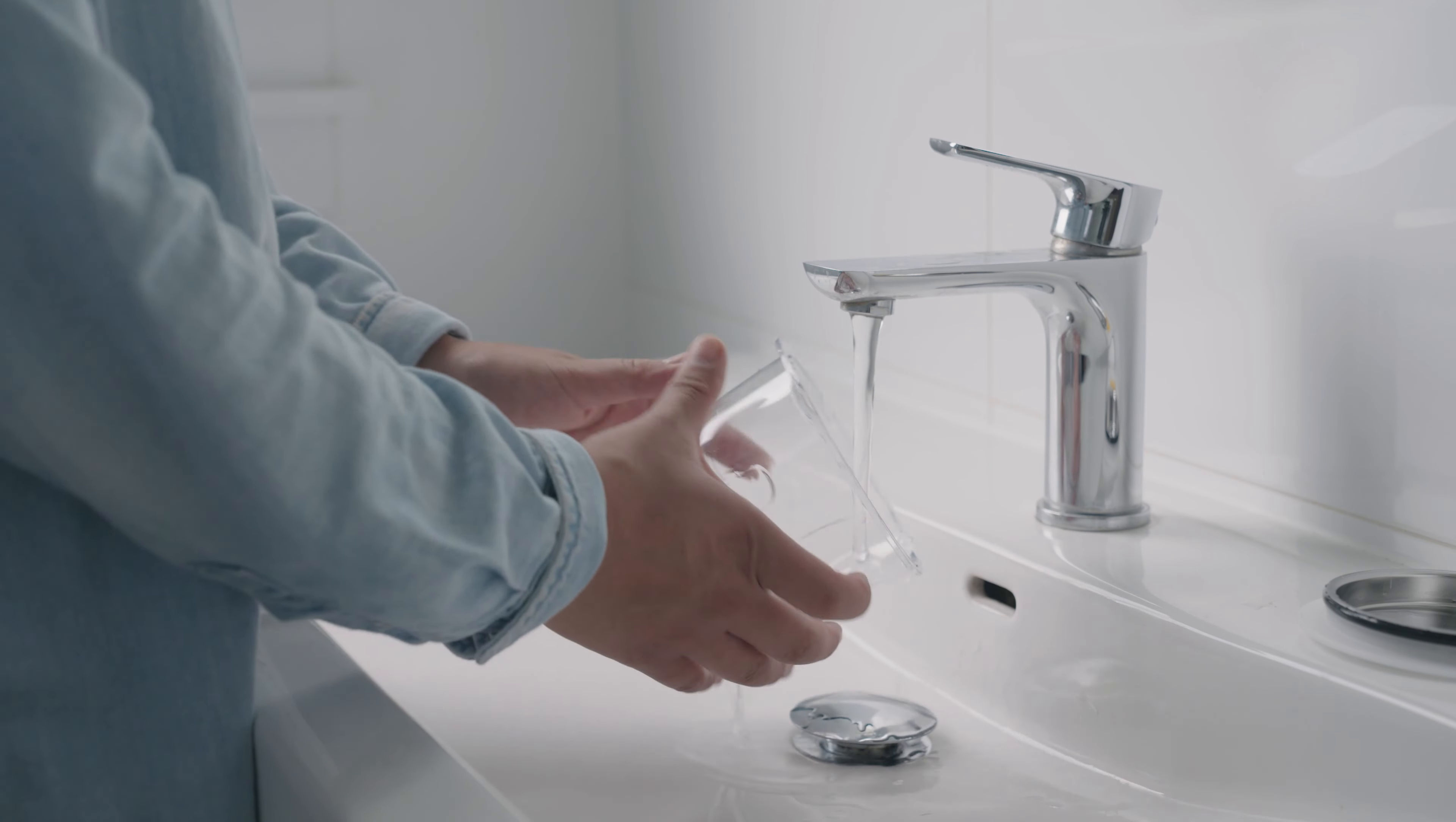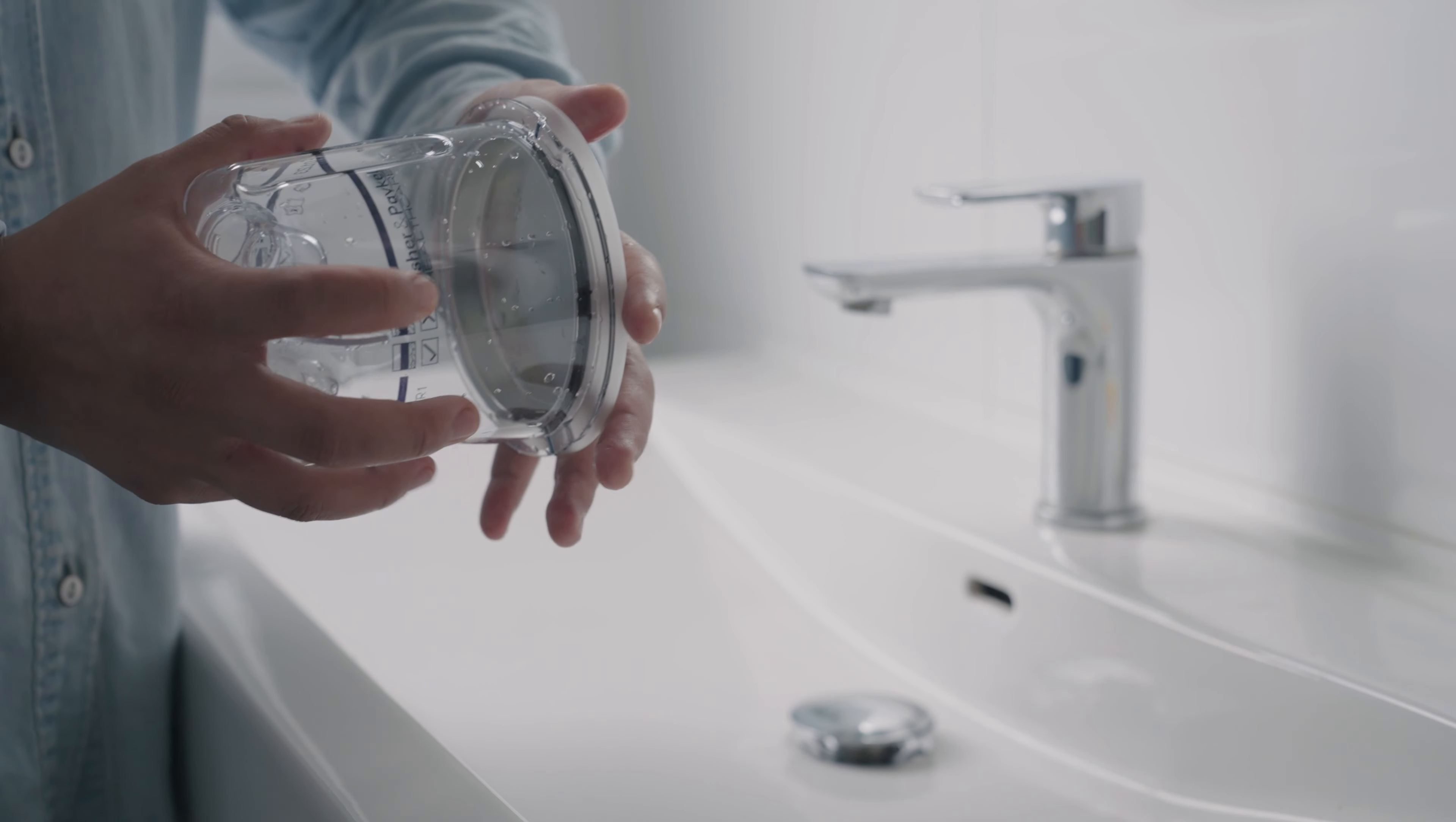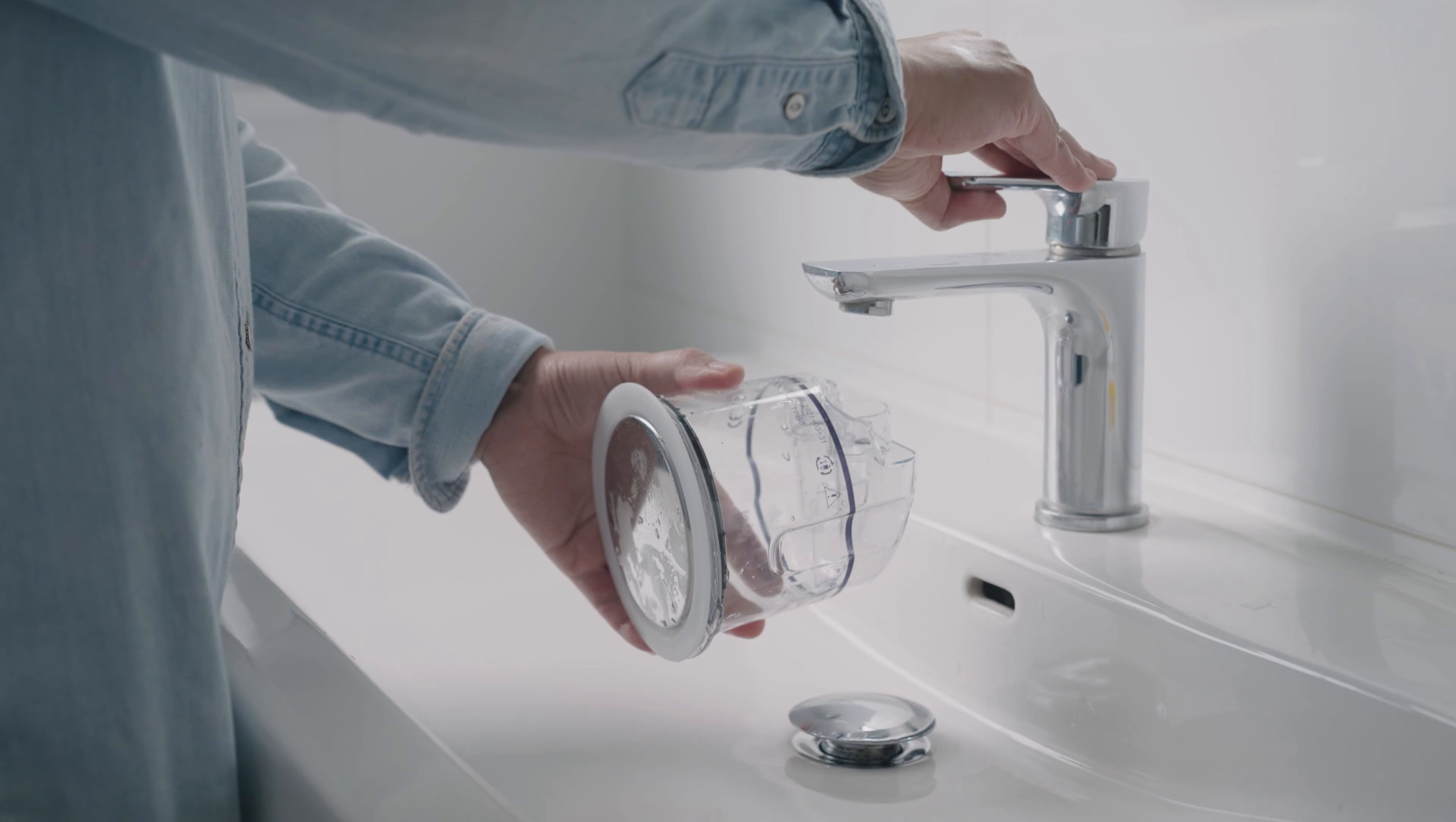Rinse both the chamber dome and base in warm water. Fit the base back onto the dome by pressing them firmly together. You can now fill the chamber with drinkable quality or distilled water.